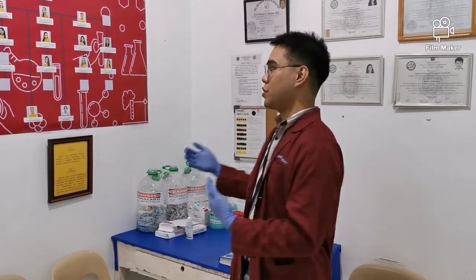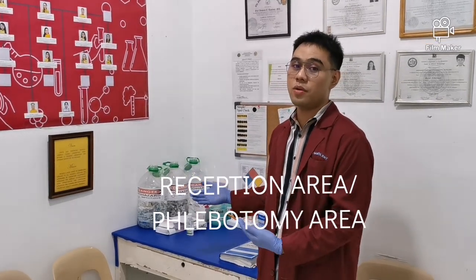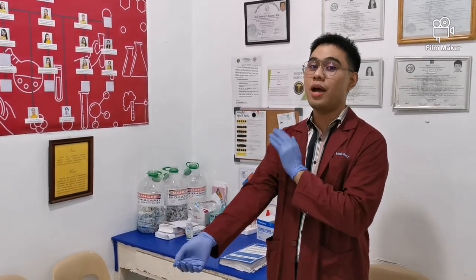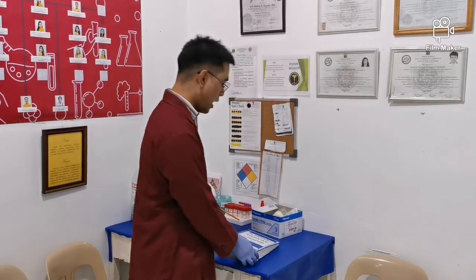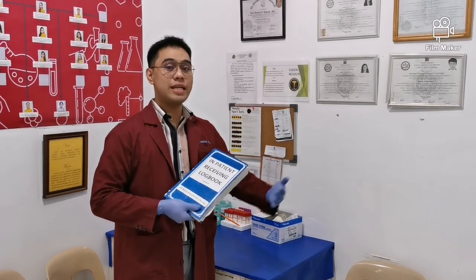So just like in any typical laboratory, yung unang-una niyong makikita kapag pupunta kayo sa lab ay yung reception area. And sometimes the reception area can also act as the phlebotomy area where you collect the blood of your patient. So in any typical reception area, of course, meron tayong mga logbooks, mga inpatient receiving or releasing logbooks.